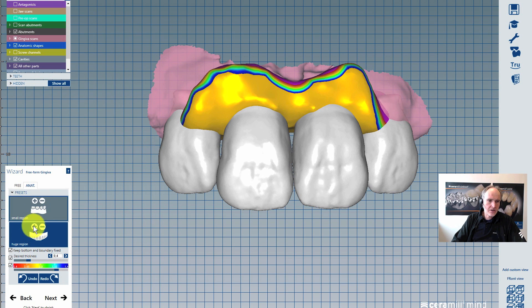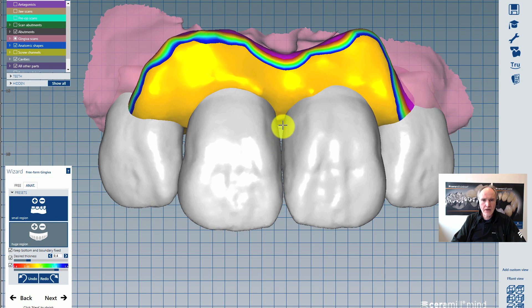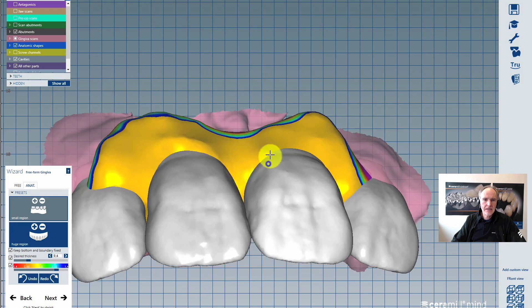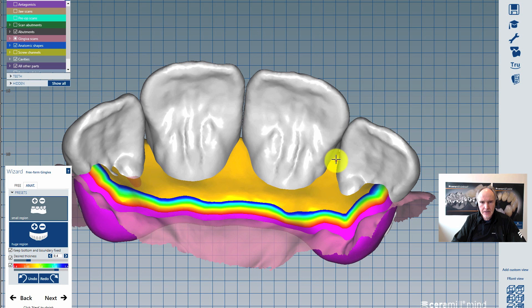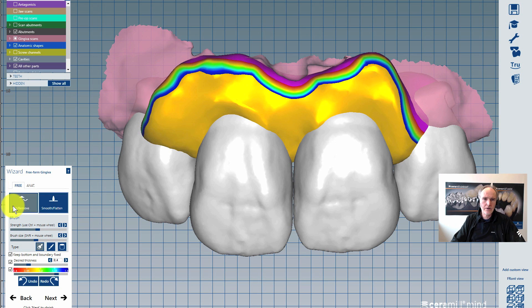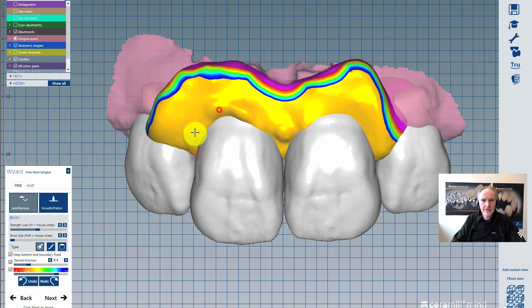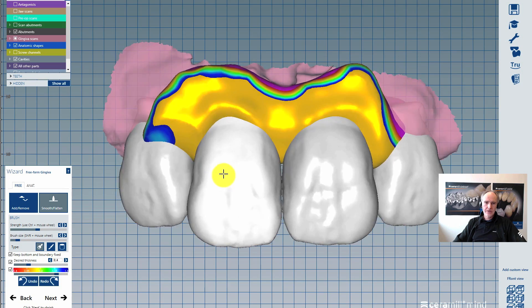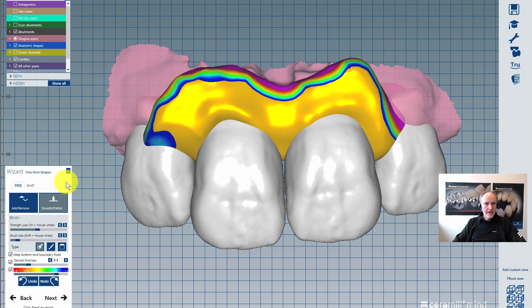We can flatten and move all parts of the gingiva in the next steps. Click next, and now we have two big buttons: a small region or a huge region movement. Starting with the huge region — if I put my mouse on the interdental approximal area and drag a little, you see what happens with the big area. With small areas you can do more precise moving to create the kind of root shape you want, lifting up in the approximate area to close that kind of windows. If you want to lift up some material, go to 'add and remove' and bring up more material if necessary to create your gingiva like nature. But remember: in some later steps we will shrink the gingiva and rebuild it with light-curing materials, so don't spend too much time on the modulation and flattening here.